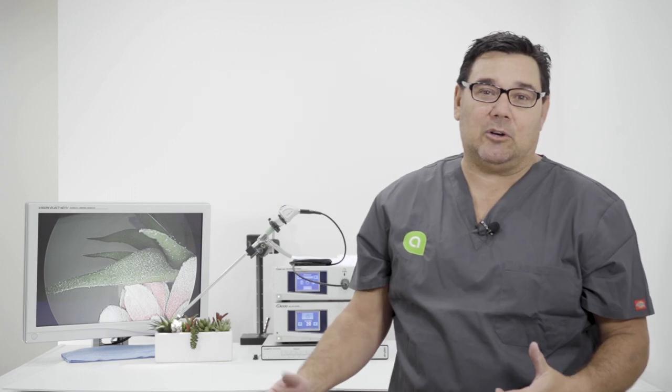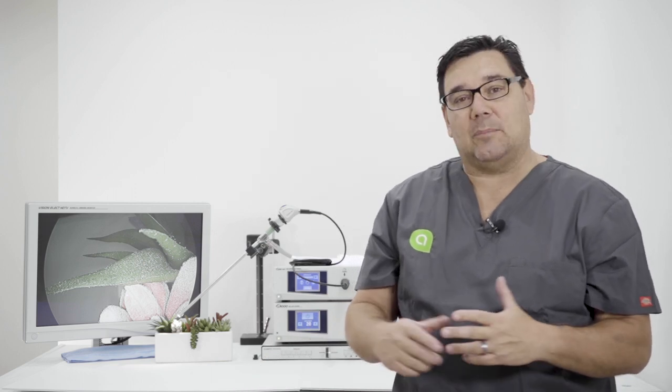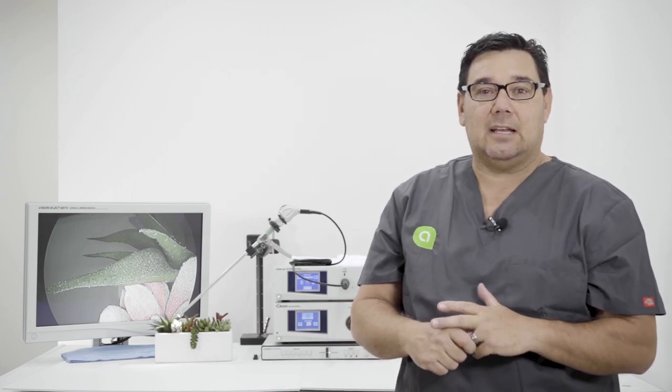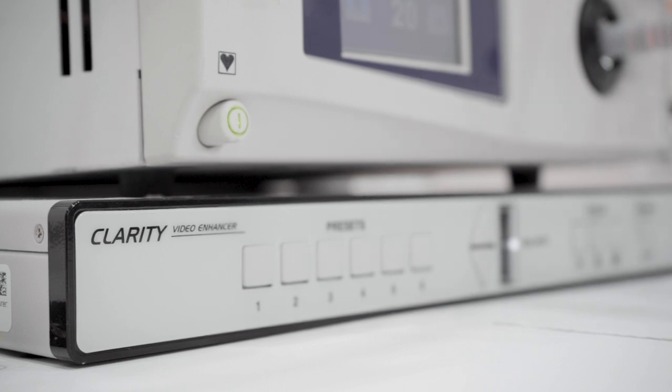Hello everyone, this is Michael at AA Medical Store. Today we're going to be talking about Stryker's Clarity Video Enhancement System.